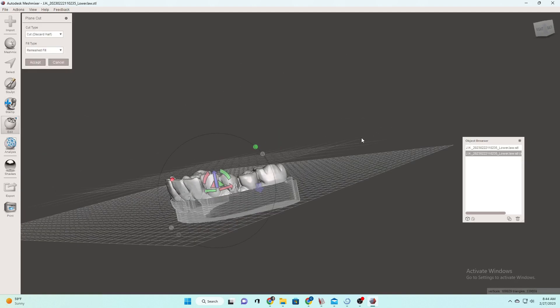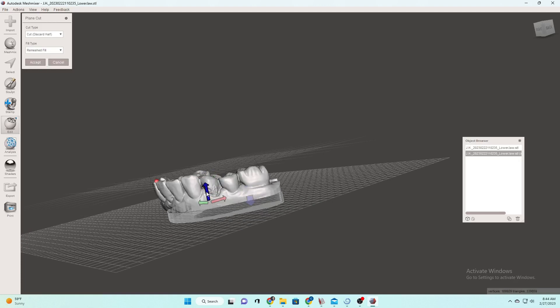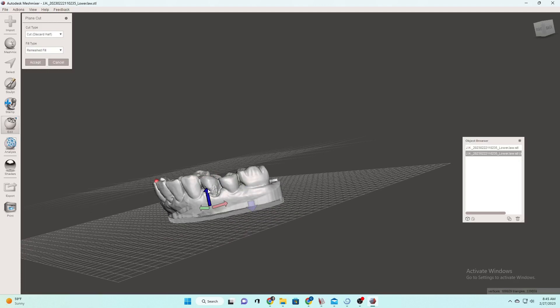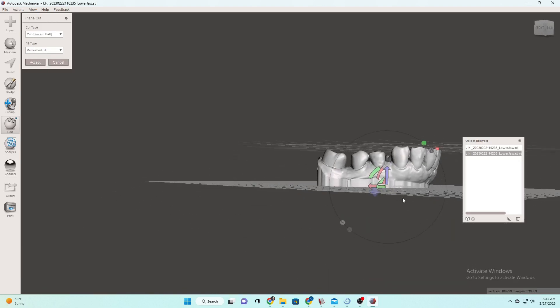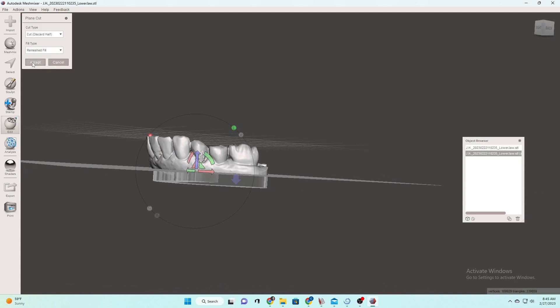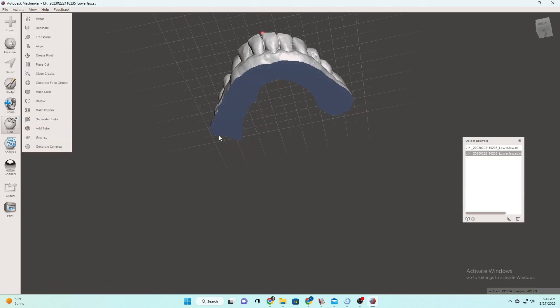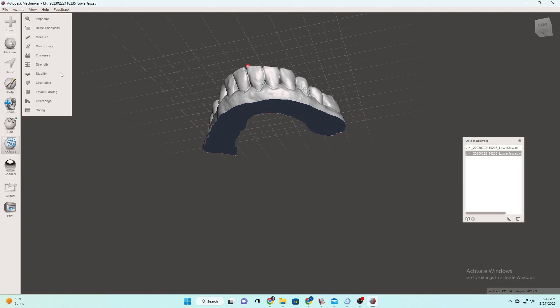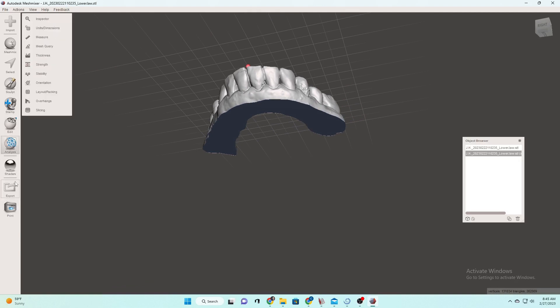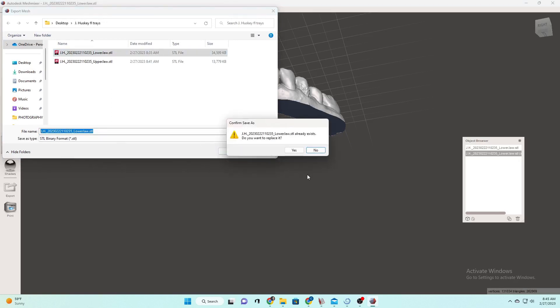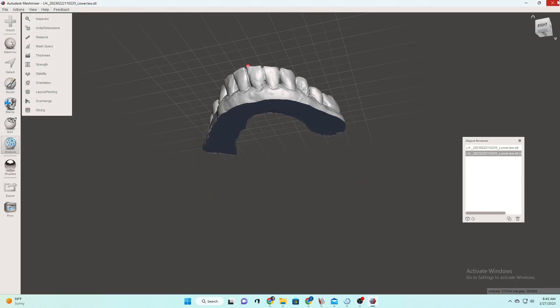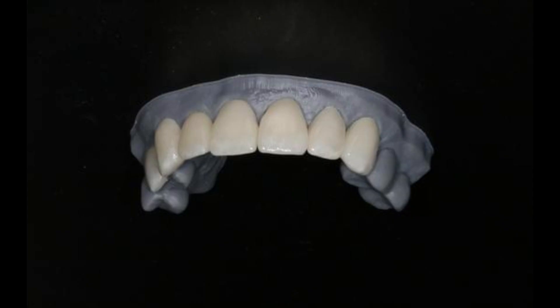Move that out of the way. And then we're going to do a plain cut again, just like we did with the upper. Don't need to print quite that much. And obviously the taller the print, the longer it's going to take. So the shorter I make these, the less time it'll take. But you also don't want to cut yourself too short. And then you won't have any room to play with the model, make retainers, anything like that. You do want some gingiva in it. Don't cut it off right at the gum line by any means. Every office is different though. And there's our solid model. And always doing that inspector just to make sure and export it and save it over the original file and make sure you save it as that STL. And there's our solid models to print.